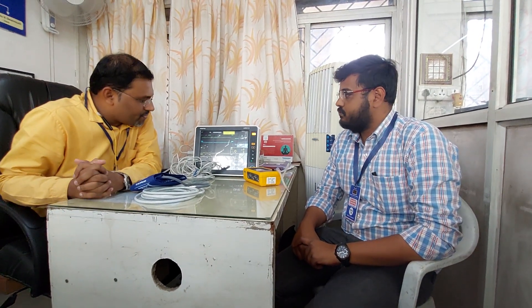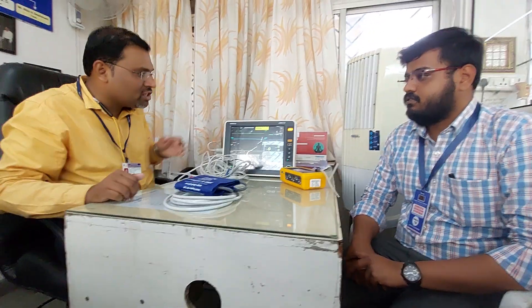Today I'm going to make a video on the calibration of multi-para monitors. We use patient monitors in the ICU, ward, and OT. There are different types like three-para and five-para monitors, called multi-para because we can check multiple parameters at a time — like ECG, SPO2, RR, and CO2. These readings are very important for doctors; if the machine gives wrong readings, treatment will go wrong for the patient. That's why each and every equipment should be calibrated properly. Today I will show you how to calibrate the machine.